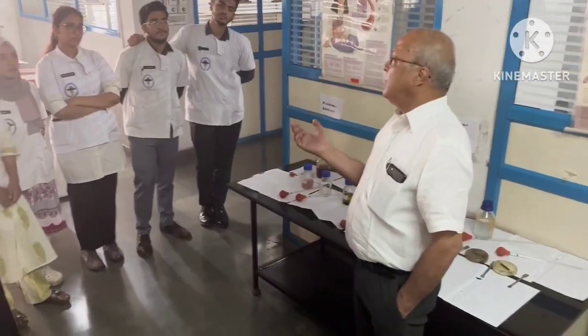Mainly they are the phosphate salts which are included in urine that can produce turbidity and can be wrongly interpreted as protein in the urine. So once turbidity is produced, we drop 2-3 drops of acetic acid on it and see whether the turbidity stays or disappears. The other question is, why do we need to heat the top of the test tube?